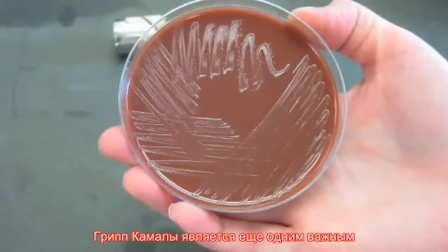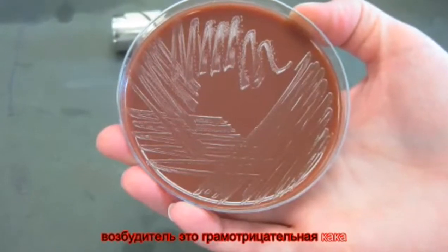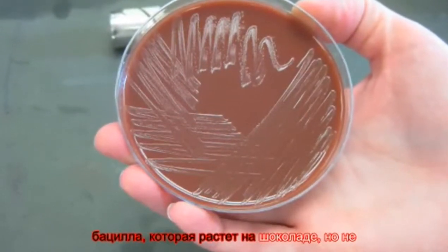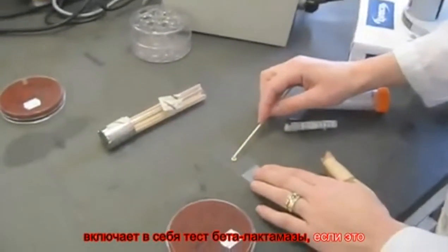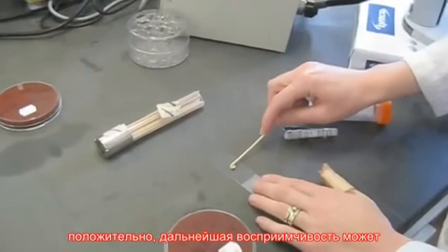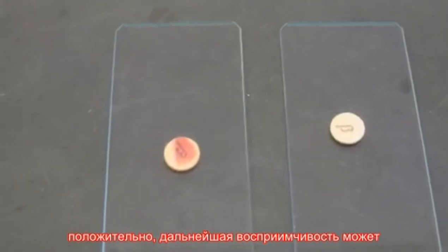Haemophilus influenzae is another important pathogen. It is a gram-negative coccobacillus that grows on chocolate but not blood agar. Antibiotic testing initially involves the beta-lactamase test. If this is positive, further susceptibility testing can also be carried out.